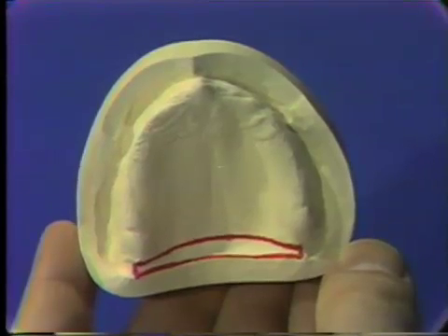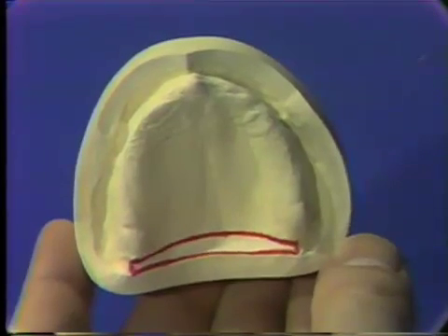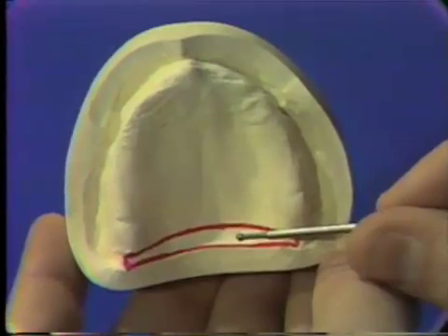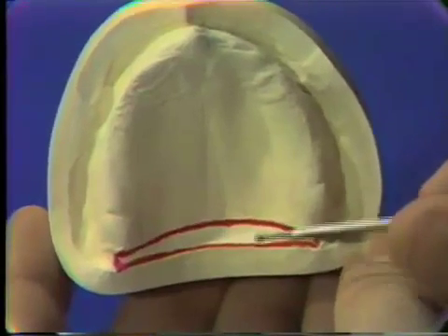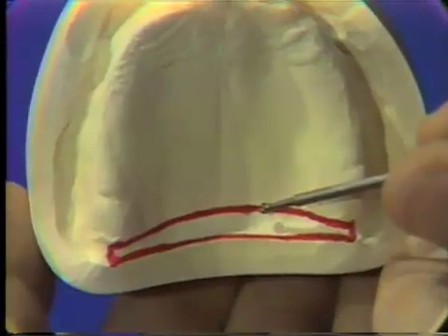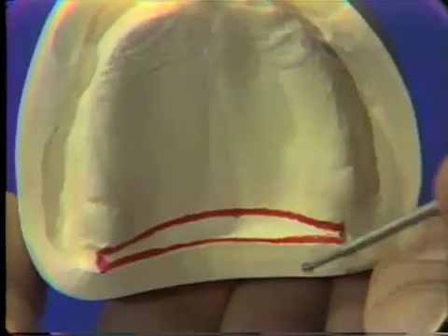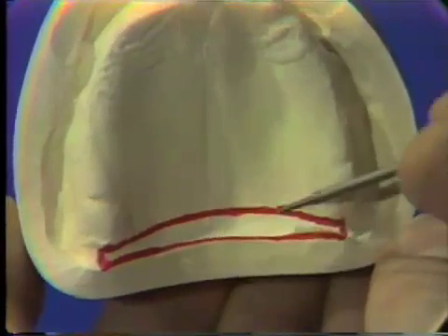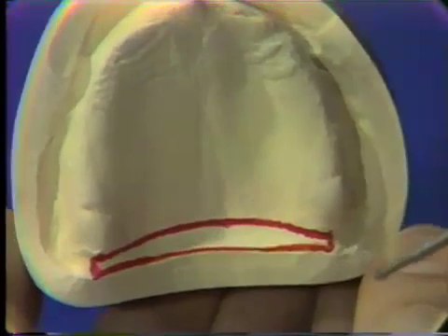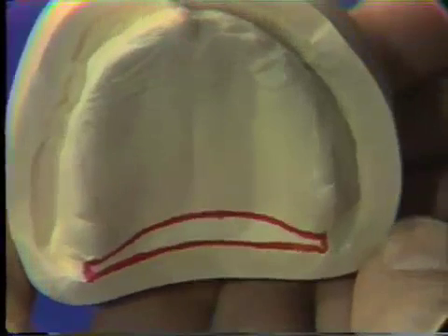The arbitrary posterior palatal seal has now been completed. The mid portion of the posterior palatal seal is one half the thickness of a number eight round burr. From the mid portion to the posterior border and to the anterior border, this has been scraped with a vulcanite scraper or round end of a number seven spatula until these blend in with the tissue surface of the master cast. The outline of the post dam has been scribed just for demonstration purposes only.